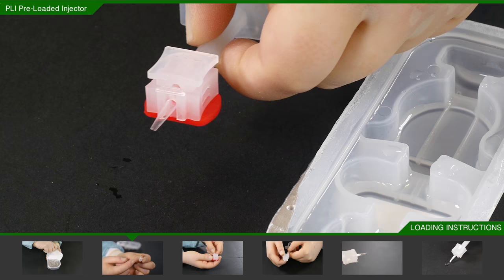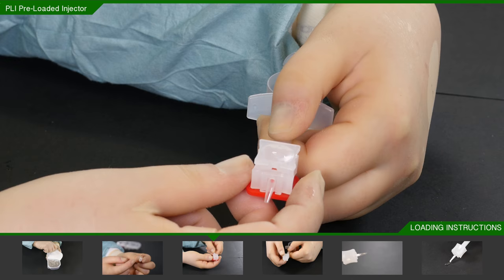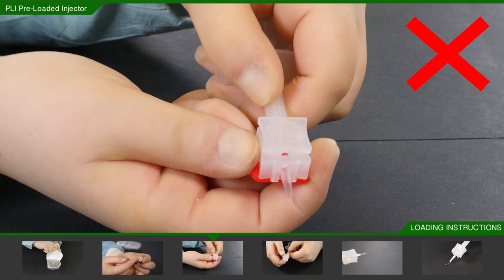Holding the PLI on the shaft and near the body, but not touching the body, remove the red nest in a single straight movement. Try not to wiggle the nest loose as this may affect the position of the lens and loading mechanism.